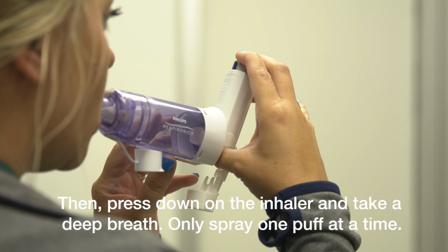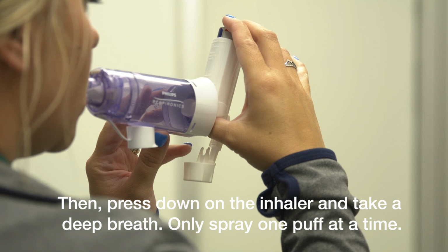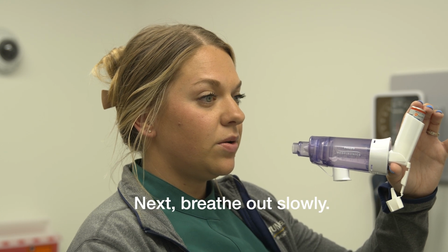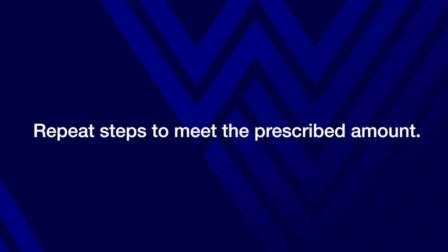Next, press down on the inhaler and take a deep breath. Only spray one puff at a time. Then hold your breath for 10 seconds or as long as you can comfortably. Next, breathe out slowly. Repeat these steps to meet the prescribed amount.